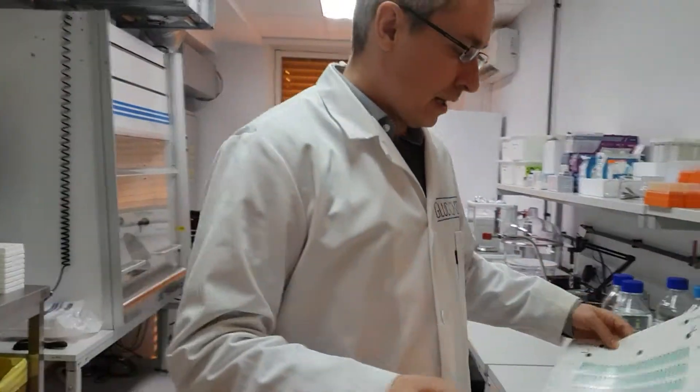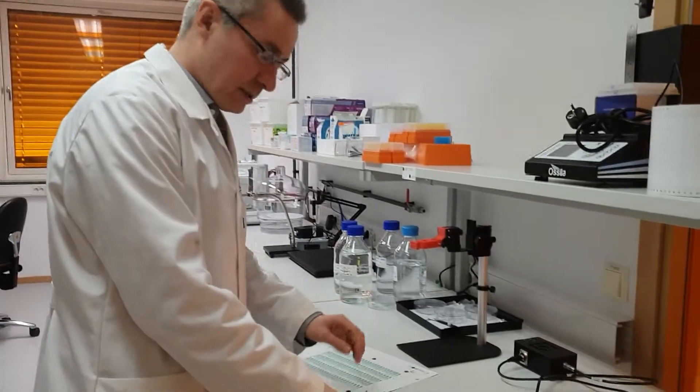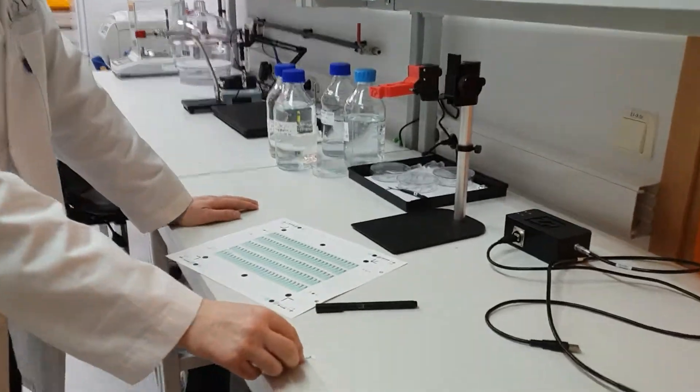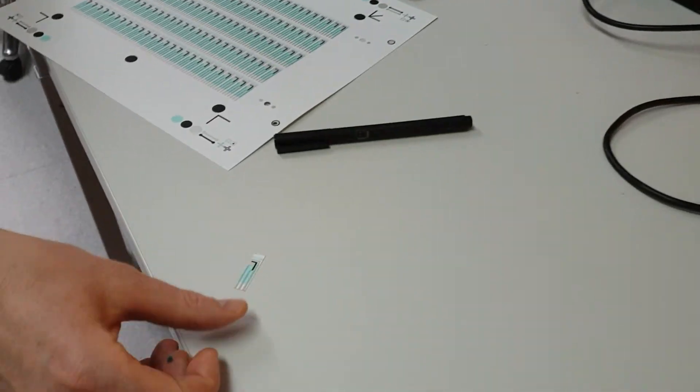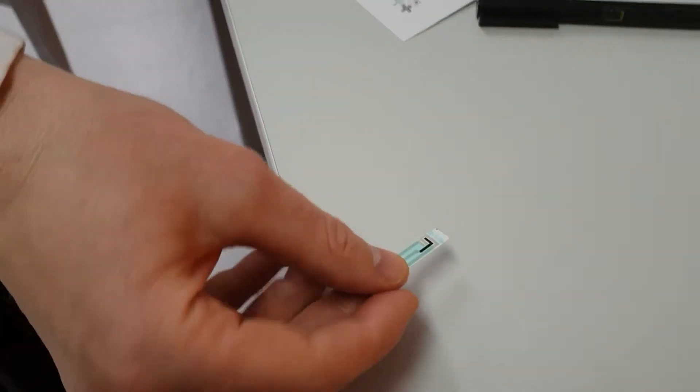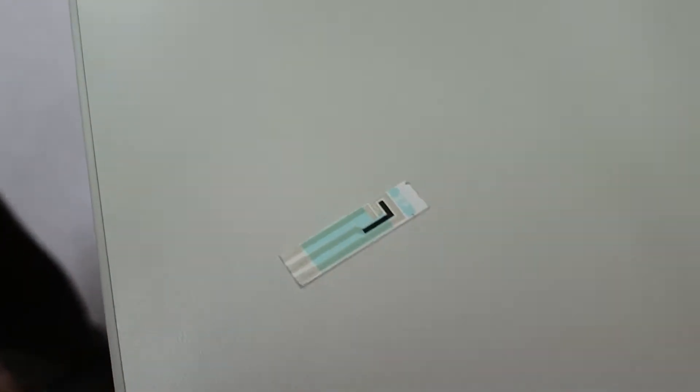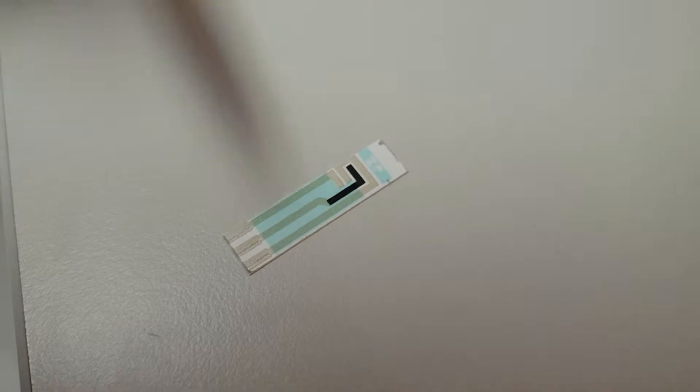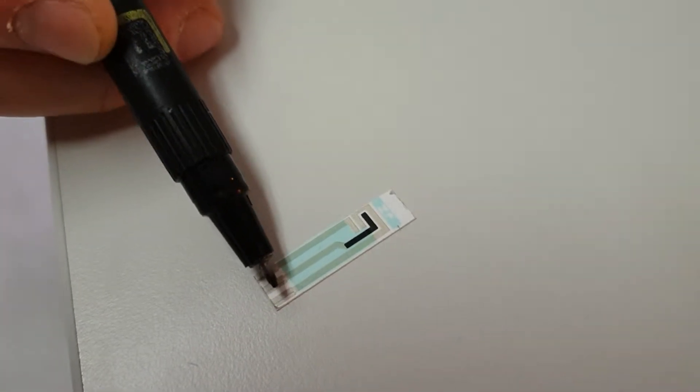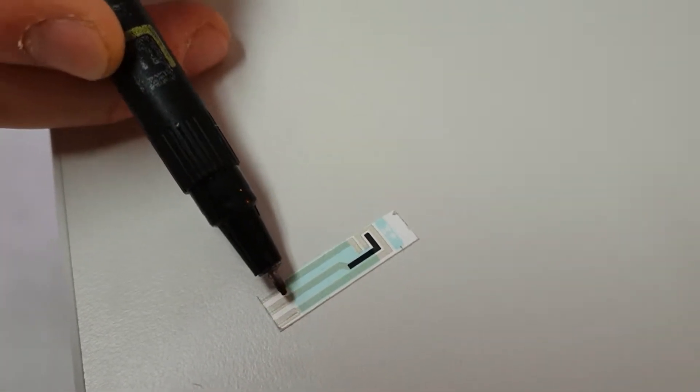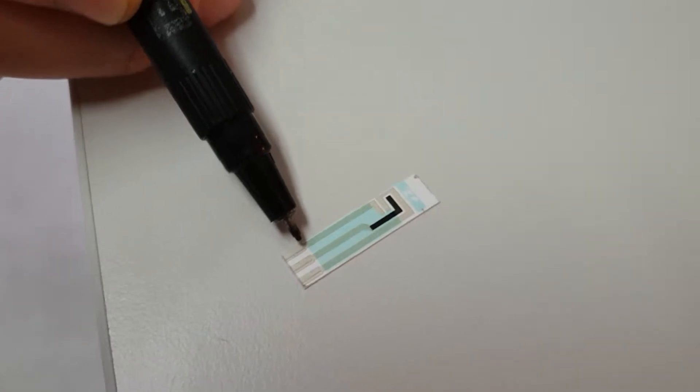I'll have the camera come in on this. What we've done is we singulate them, and this is how we actually ship them. They come in singulated form. We have a reference electrode, a working electrode, and a counter electrode.